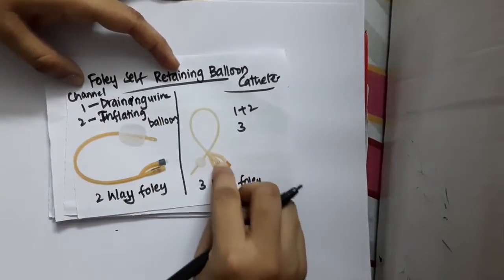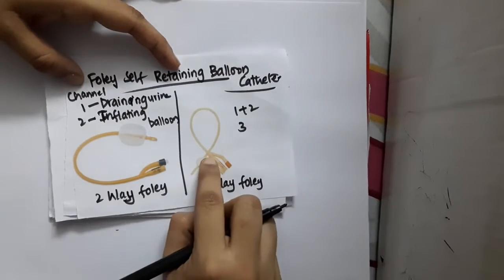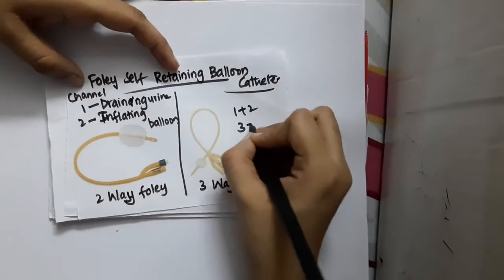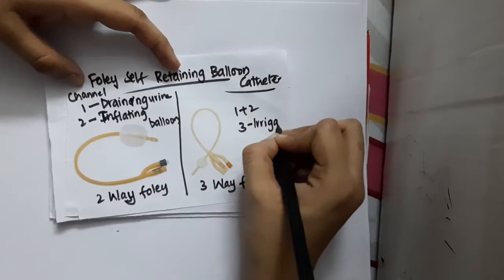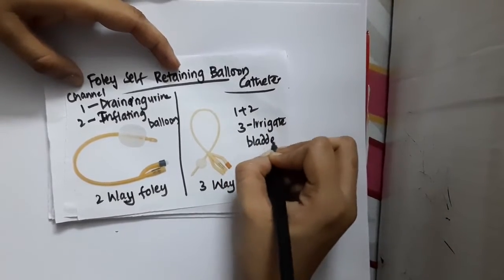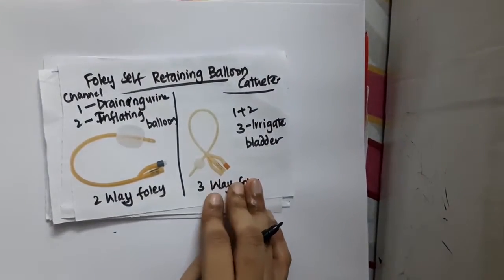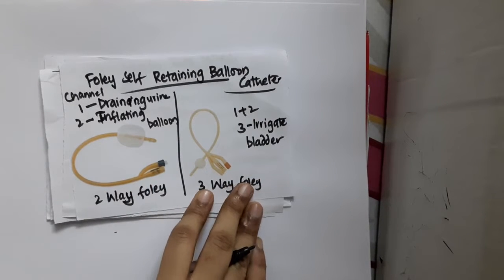This is the three-way Foley's catheter. Along with draining the urine and filling the balloon, there is also a third channel which can be used for irrigating the bladder.